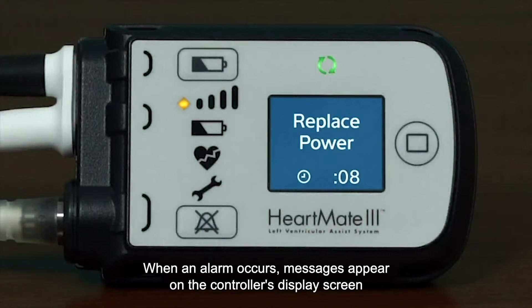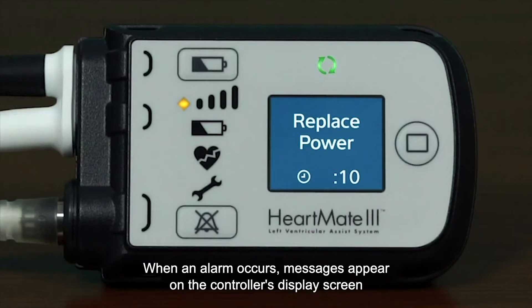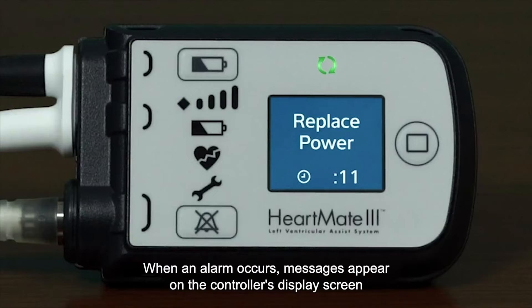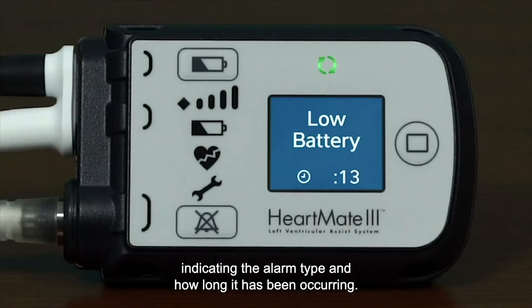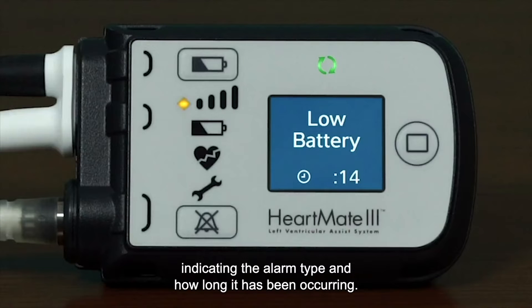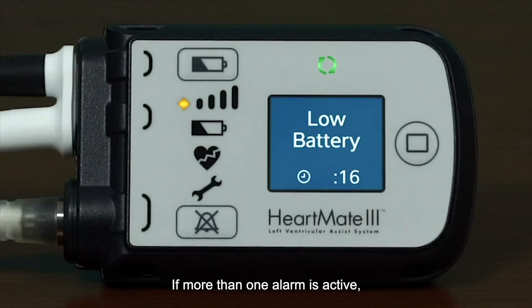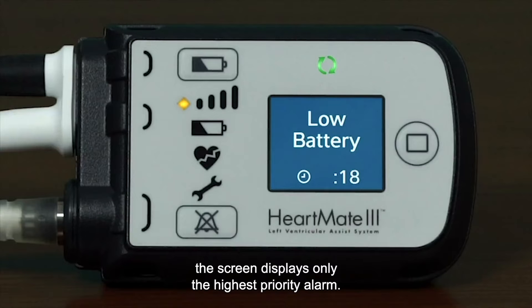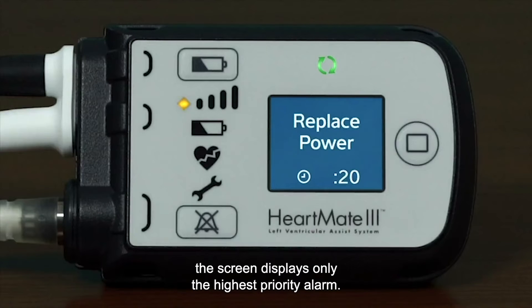When an alarm occurs, messages appear on the controller's display screen indicating the alarm type and how long it has been occurring. If more than one alarm is active, the screen displays only the highest priority alarm.